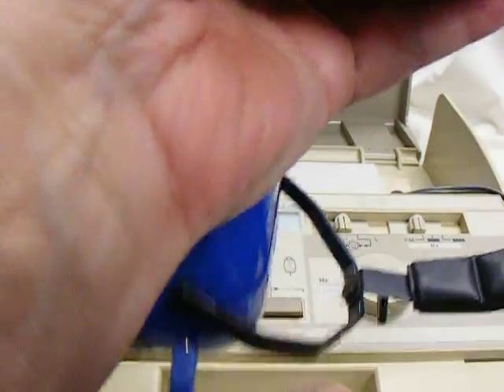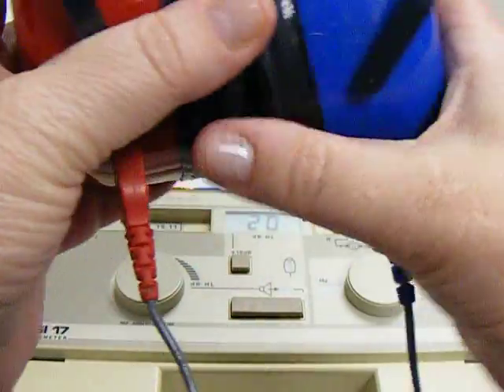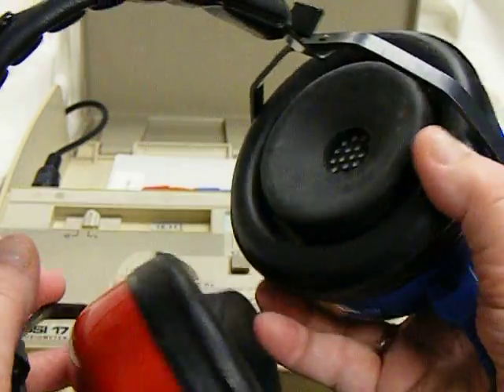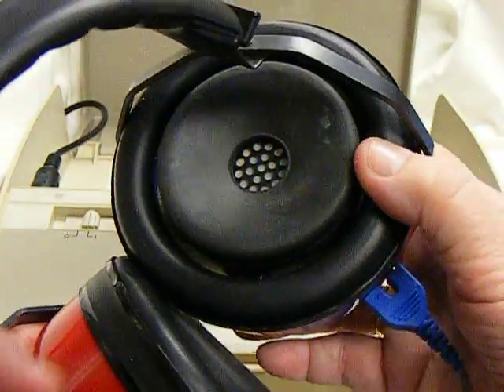These are the earphones that most of you will have. They are the audio cup. They are double cupped. You can see they have one earphone inside and a cup to help isolate the background noise on the outside.